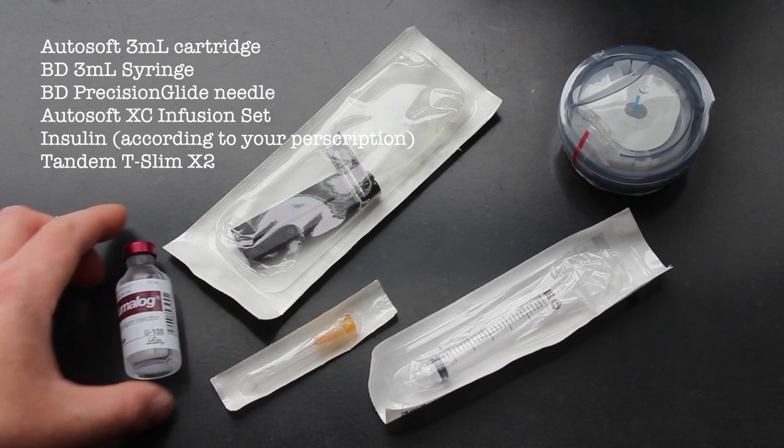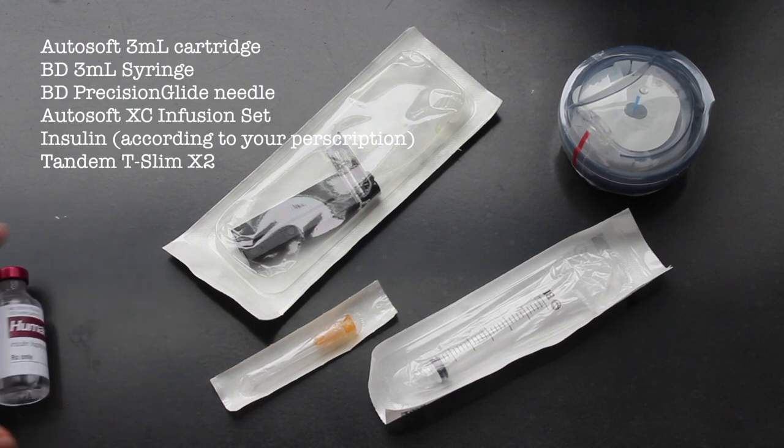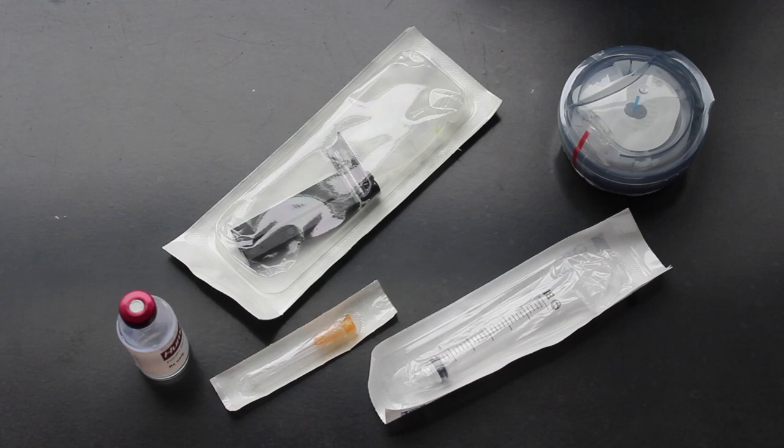Your material might look a little bit different than mine, as we might have different suppliers, but overall it should be pretty similar.